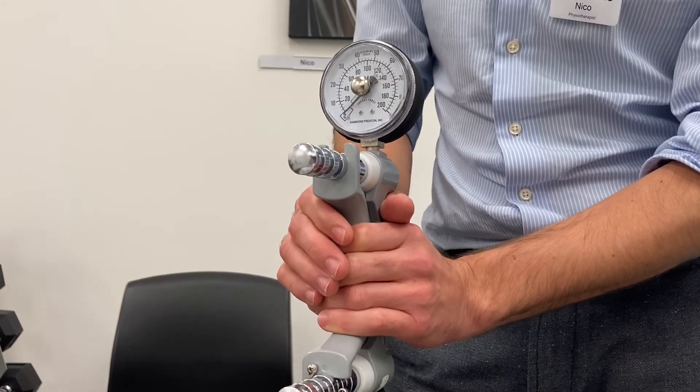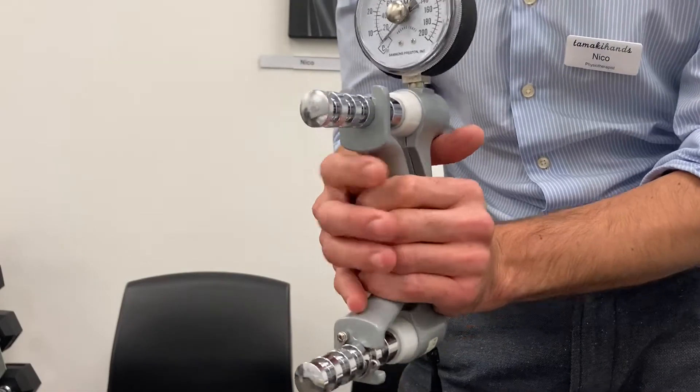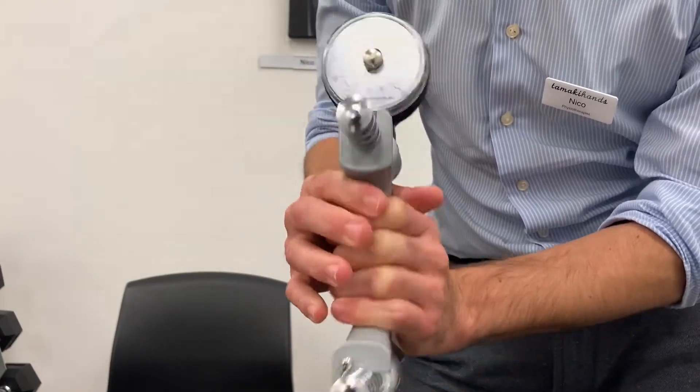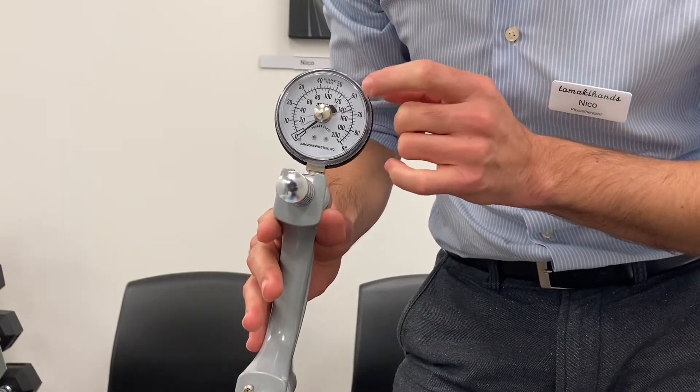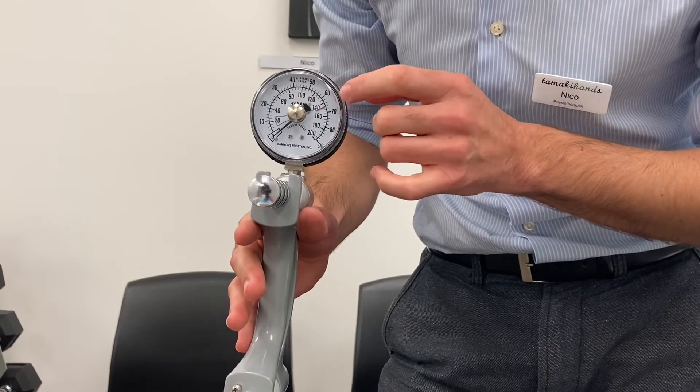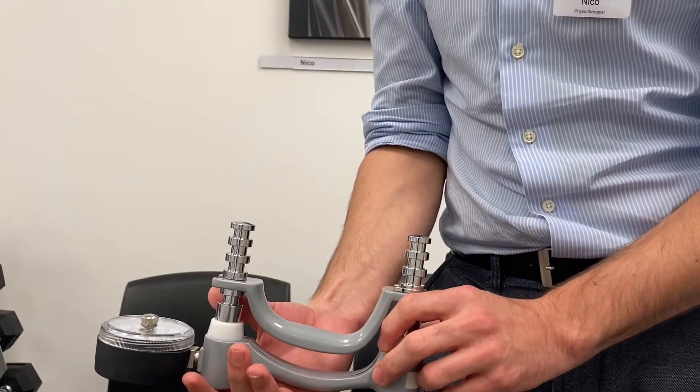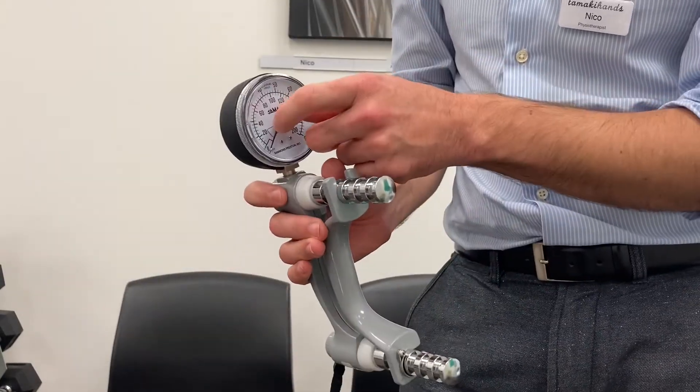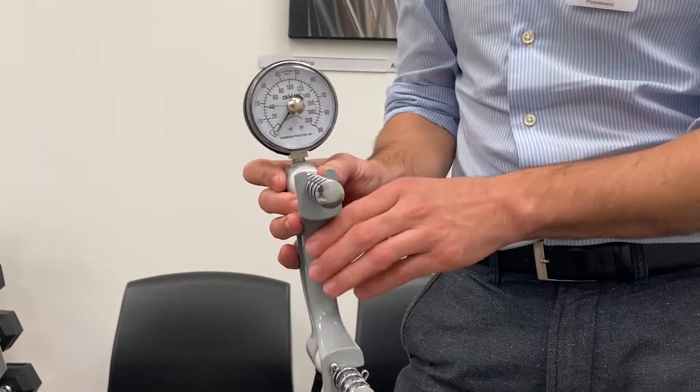So you just go with two hands and give it a good pump. Make sure that you don't get beyond 90. And if there was any oil leak, this would probably push it up. And then if you were to test it against another weight again, you might see that the dial would be reading lower. And in that case you probably wouldn't be able to calibrate it at all.